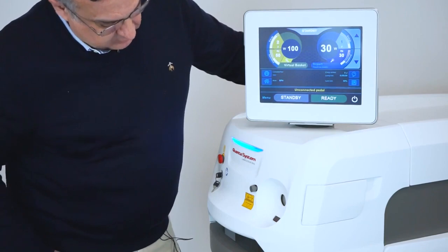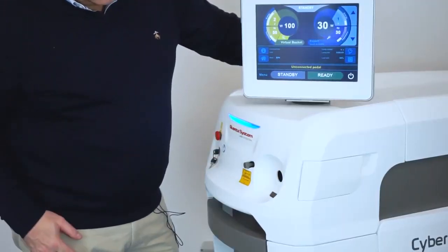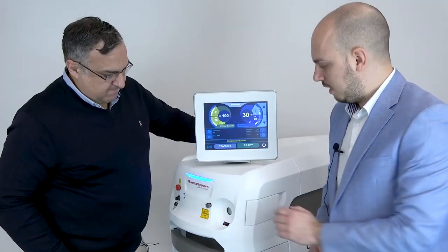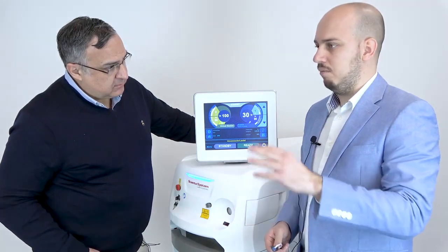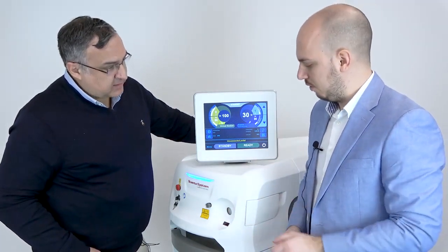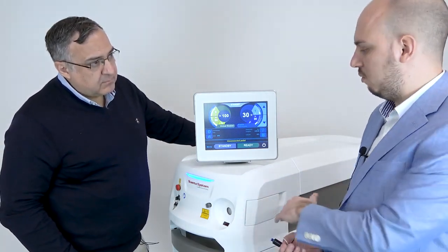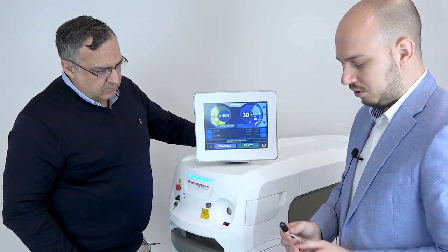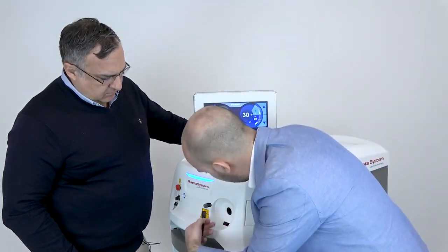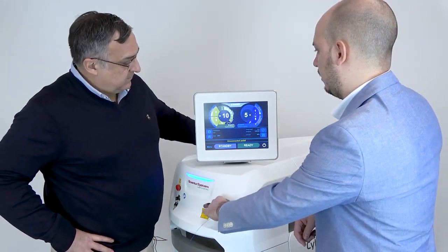The connector opens when I put my hand near it and closes automatically when I take it away. Greg explains this protects the connector from dust or accidental touching by other operators. Dust inside is a bad idea. When not in use, access is limited. When you approach with a fiber, it opens automatically — you screw the fiber in and the fiber is recognized automatically by the system.